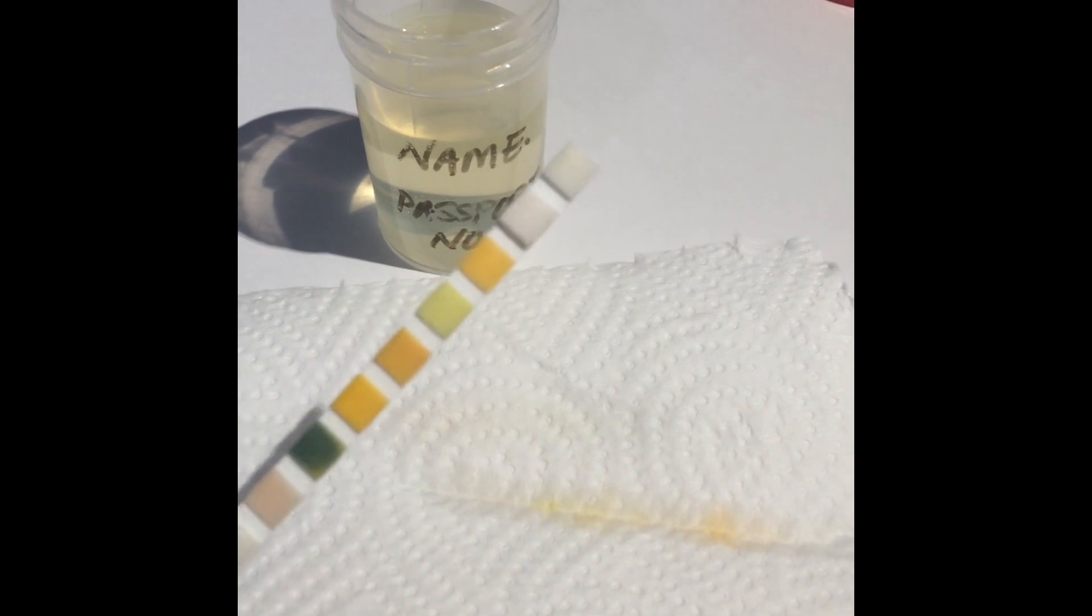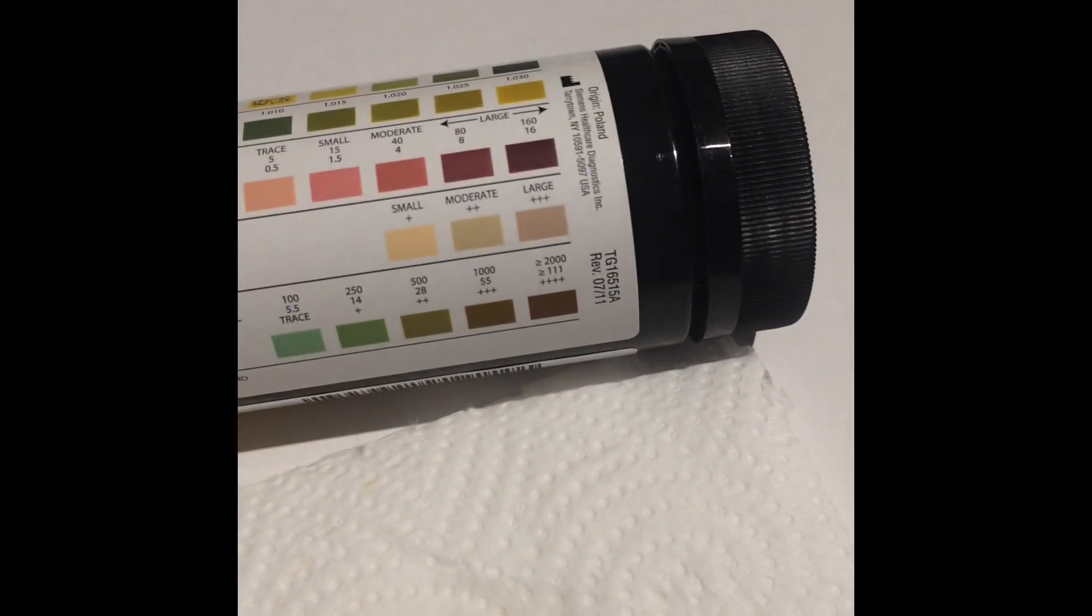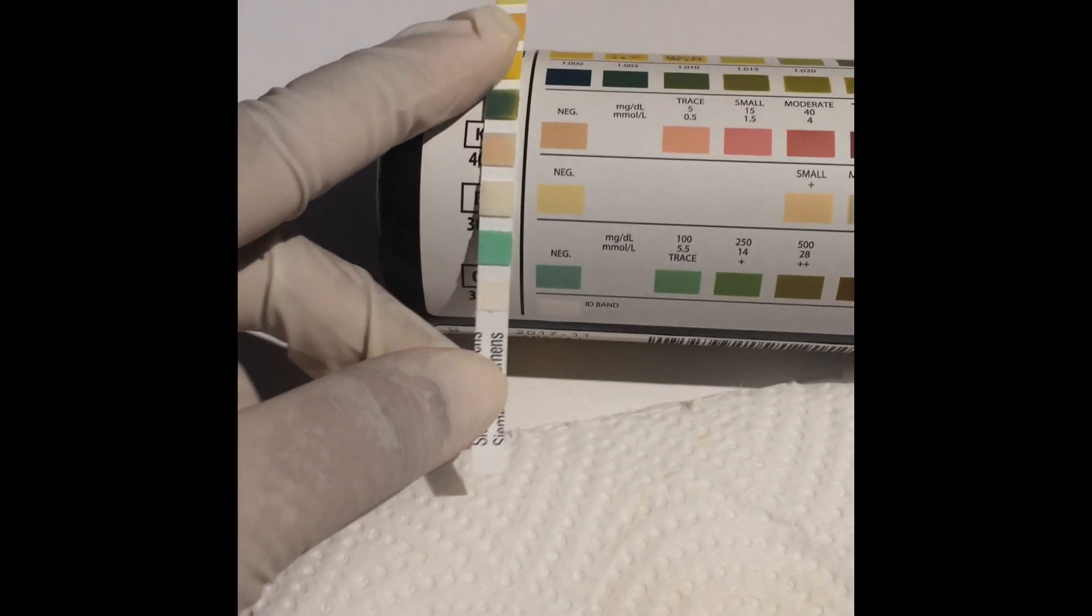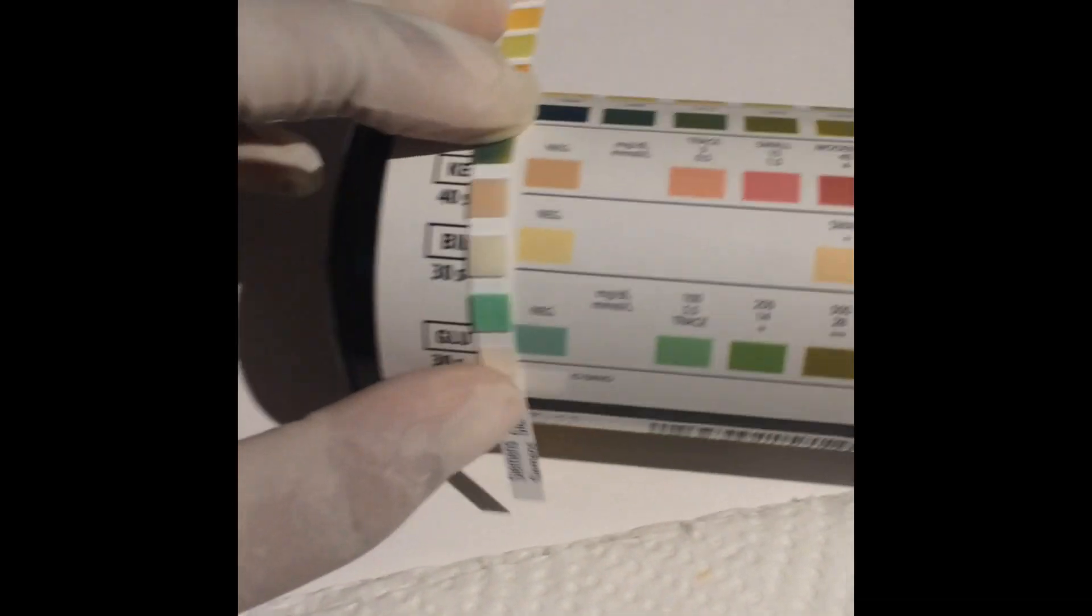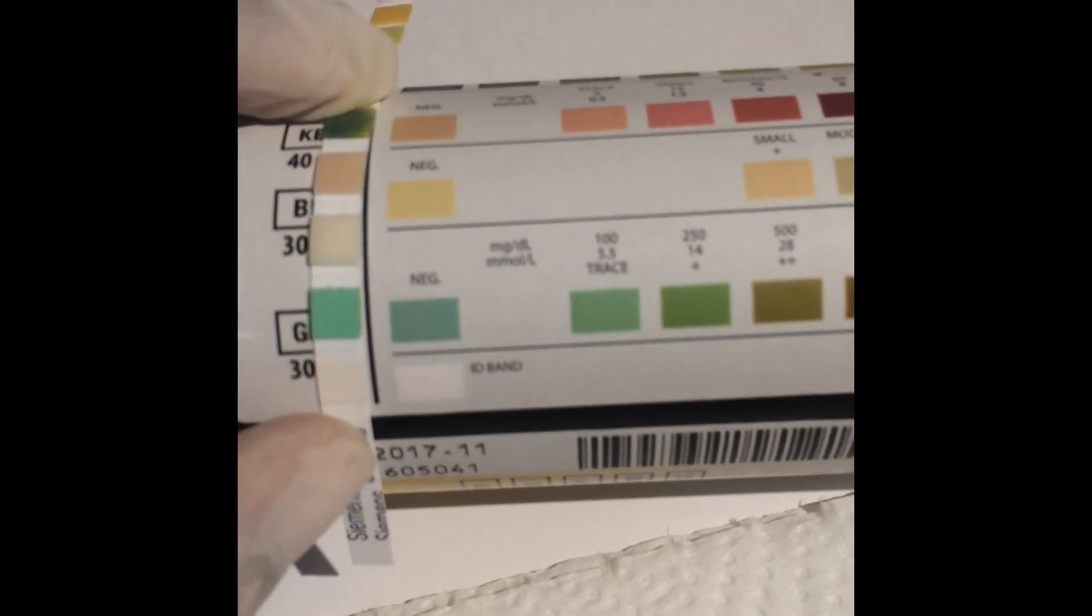Immediately start the stopwatch. Compare each square with that on the bottle or color chart given at the specific time.